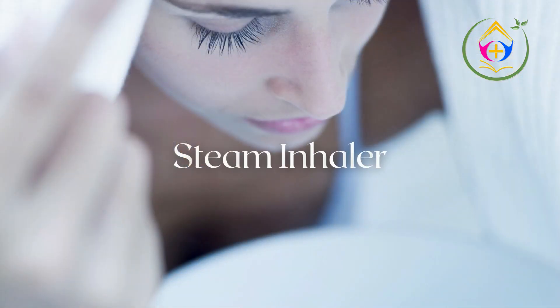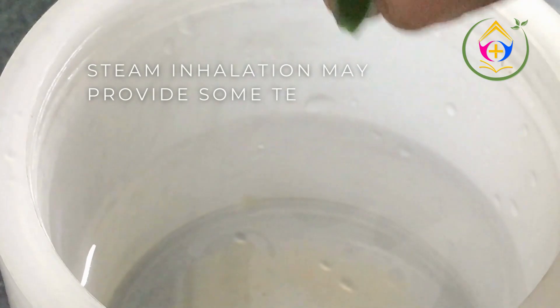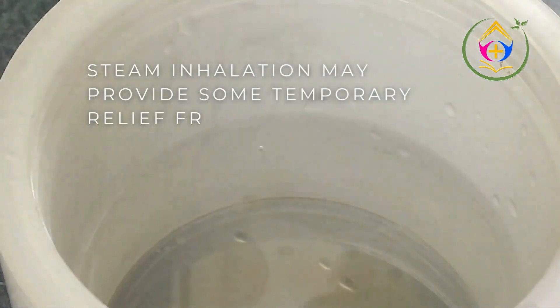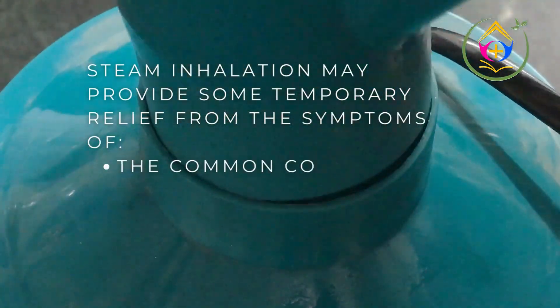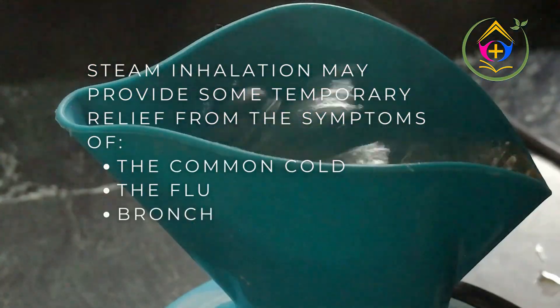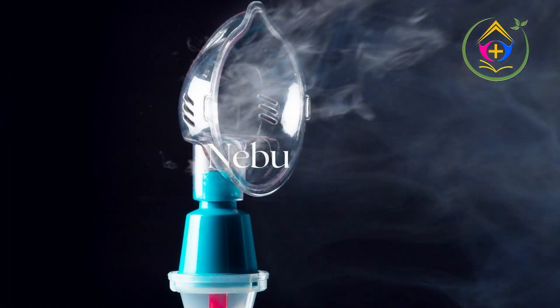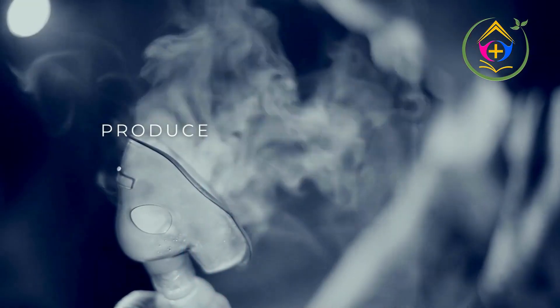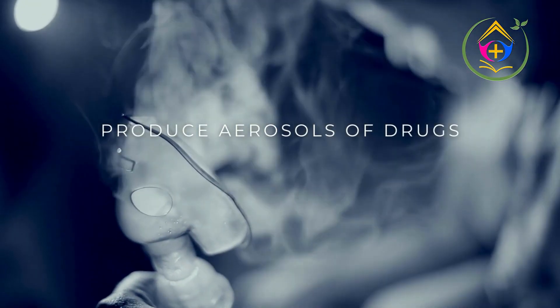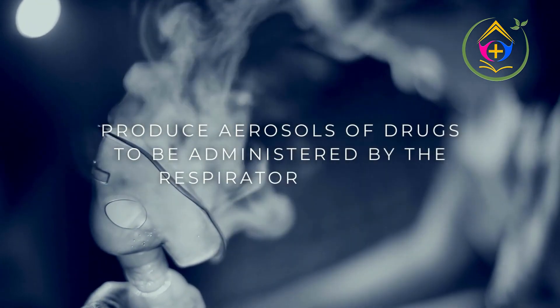Steam Inhaler: steam inhalation may provide some temporary relief from the symptoms of the common cold, the flu, bronchitis, and nasal allergies. Nebulizer: produces aerosols of drugs to be administered by the respiratory route.